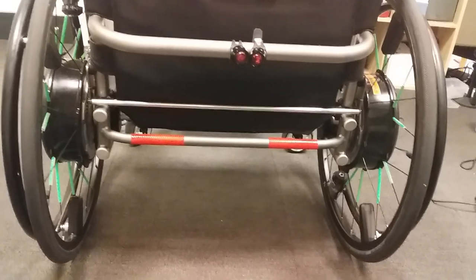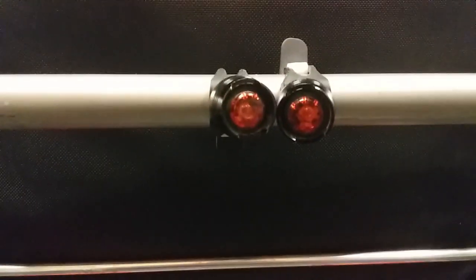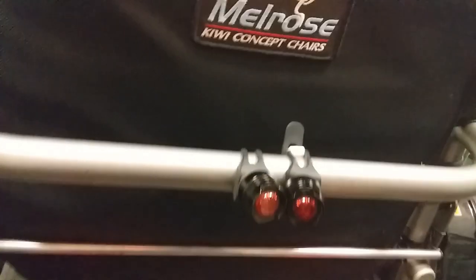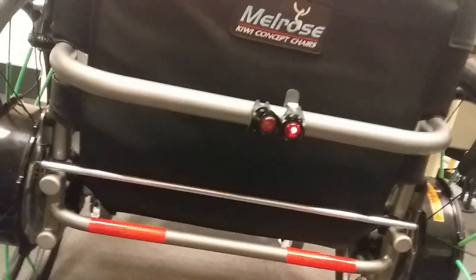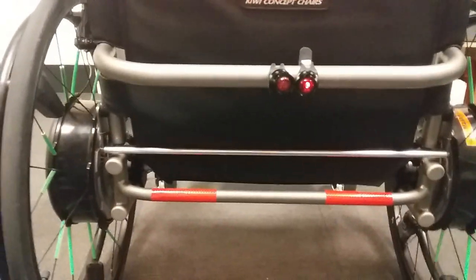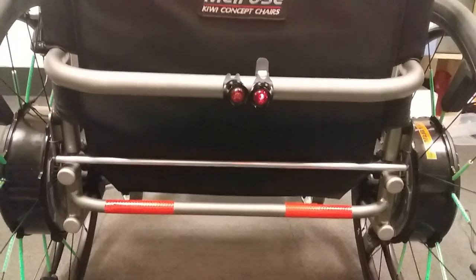As you can see, I've got some red reflective tape. It's there so if I'm wheeling at night time, people can see me. I bought it really cheap — like two dollars a roll. I've also got some lights I got on eBay for about a dollar each, but none of them actually work that well — that one doesn't, that one's bright. They're not the best lights for a wheelchair like this. I have thought about putting some decent ones on the bottom but I don't know where to put them — I've got a few ideas and I'll show you under the chair in a second.